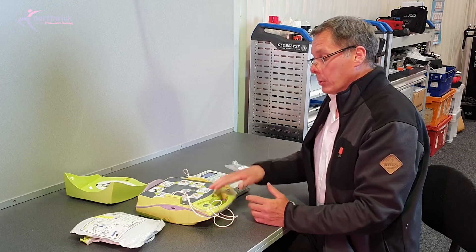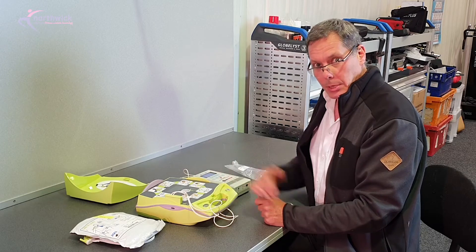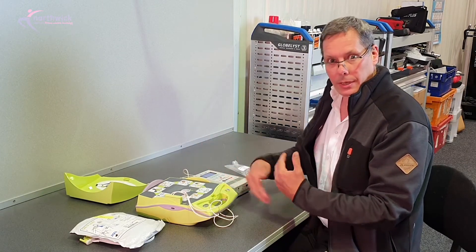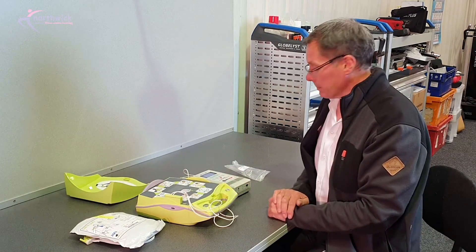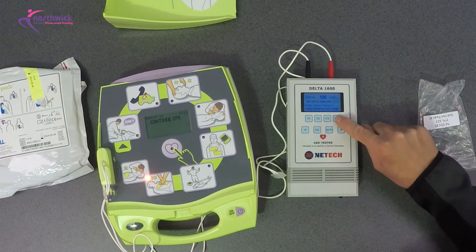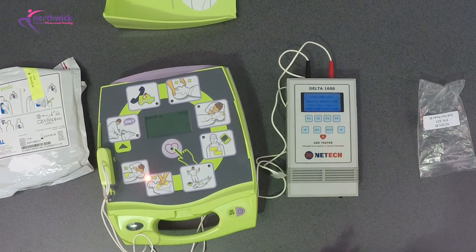This part of the sequence is also important. You don't get to see this. It's now in a two minute CPR cycle, so we would check that that two minutes times out and then it reanalyzes. So while it's doing that, I'm just going to switch our device to an arrhythmia pattern that would not require a shock.